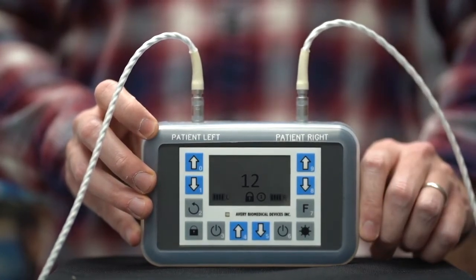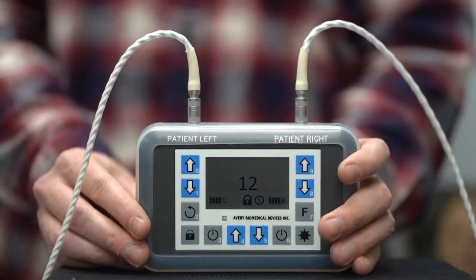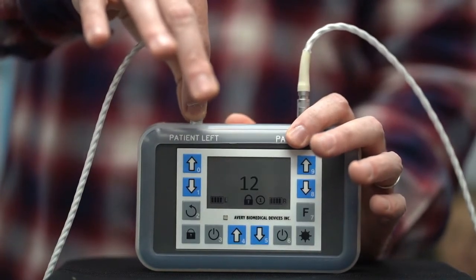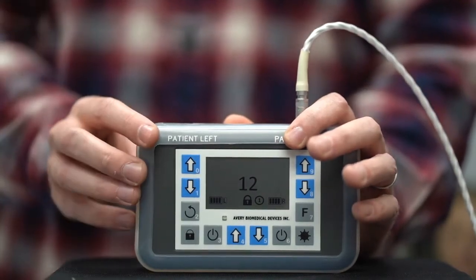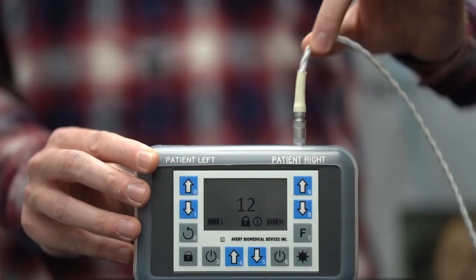Do not rotate the metal plug when it is in the Spirit socket. To remove antennas when the Spirit is not in use, turn the device off, firmly hold the Spirit with one hand, and grasp the antenna only by the rough collar or barrel of the metal plug. Holding the connector, pull it straight out. Do not pull on the wire or its rubber covering, and do not twist it or force it to disconnect.